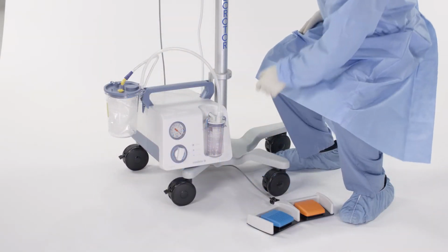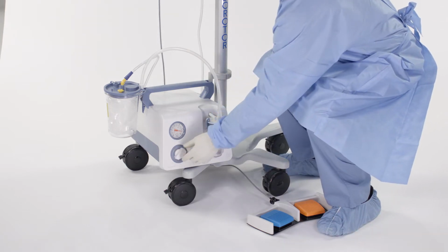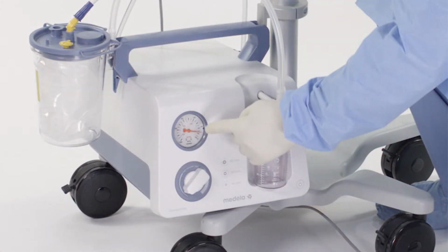Activate the independent vacuum by pressing the bottom right power button once. Control the suction by turning the dial clockwise or counterclockwise, referencing the inner orange numbers. It is important to confirm vacuum settings with a physician. For a procedure in which tissue collection is not desired, the vacuum should be 350 millimeters mercury and can be increased as physician feels appropriate during the procedure. Vacuum setting up to 750 millimeter mercury is acceptable.